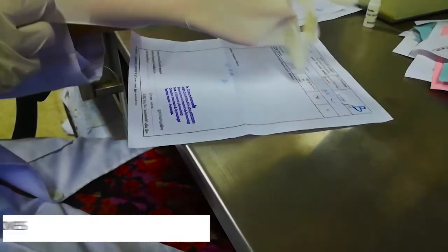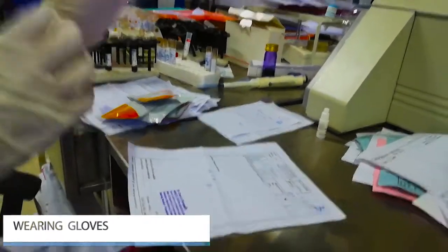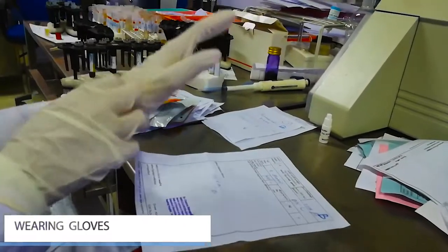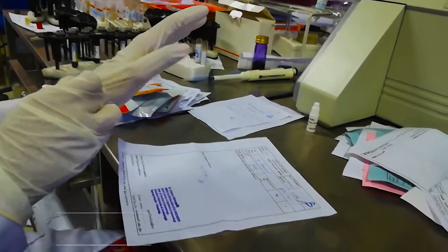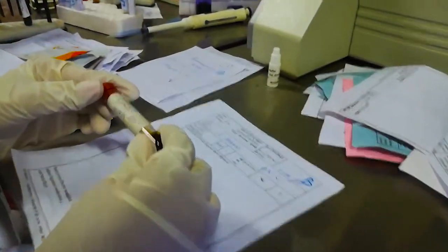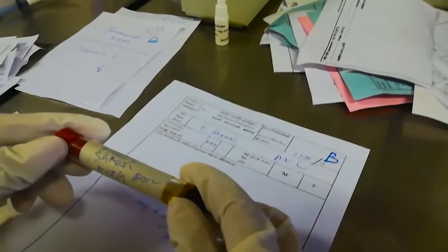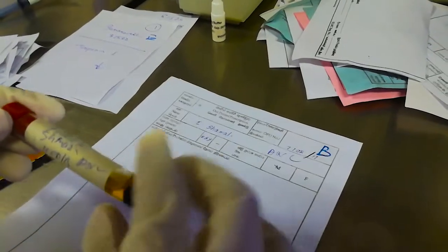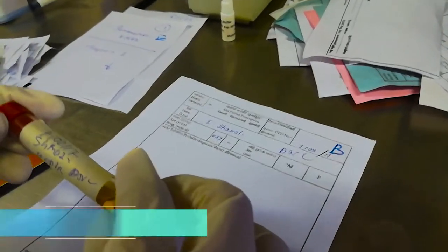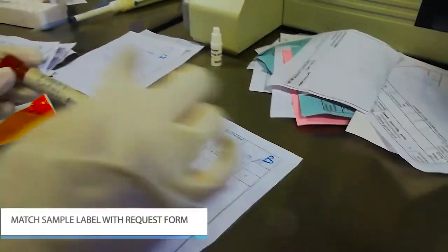First, wear gloves. For this test, we are going to use patient serum. Then match the sample label with the request form.